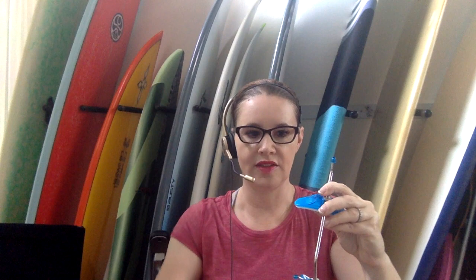The first thing you'll do is take out your reverse pull face mask. This is my favorite type — it's really streamlined and goes right down the middle. There are ones that have two bars on the side, but those are very uncomfortable to sleep with, so I highly recommend this one. There are two components: the forehead component and the chin component, which is where you'll attach the elastics. All three pieces are adjustable with a hex screw.